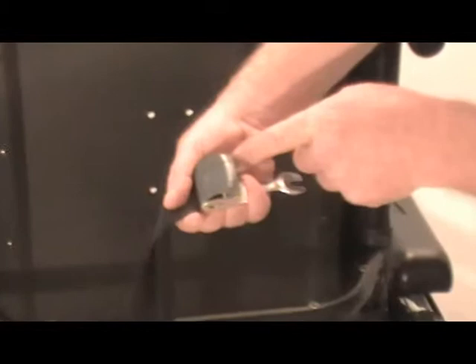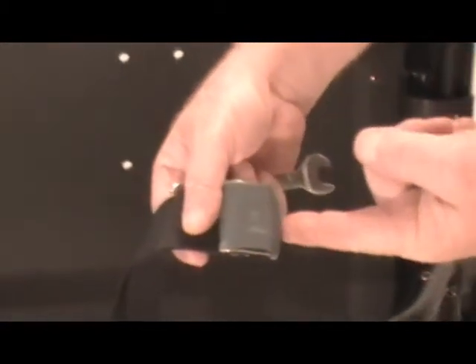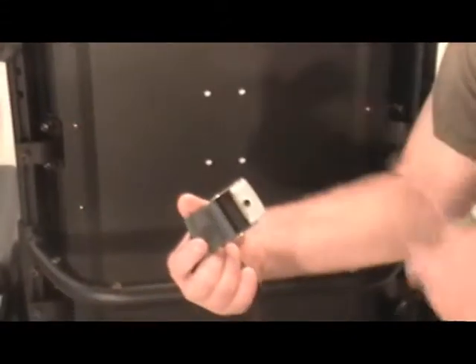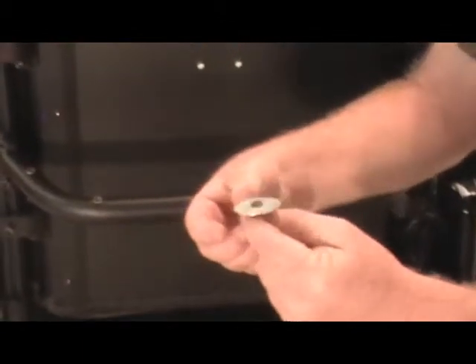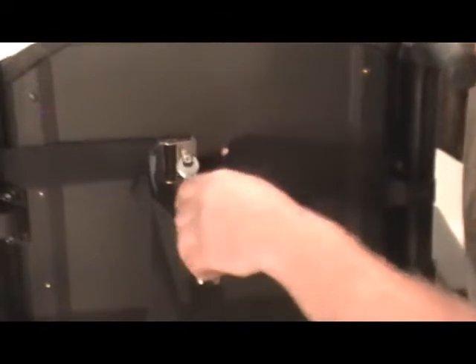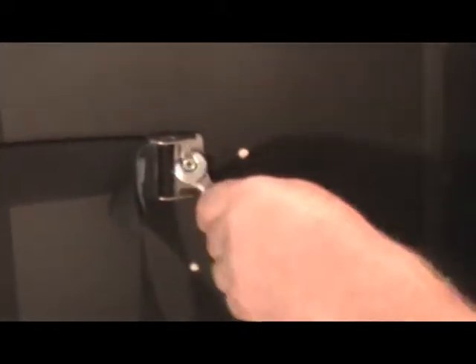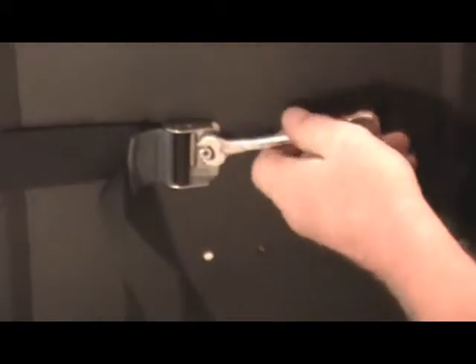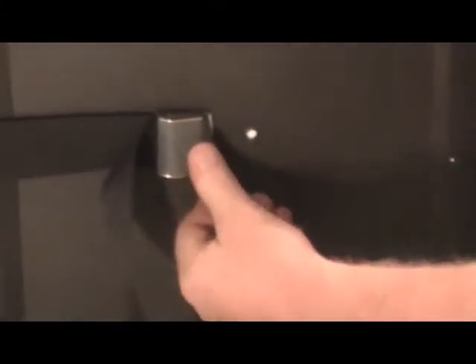The buckle of the Securiti has a little plastic cover over it, so you'll have to flip that up and that'll expose a hole for that. Now we're going to attach the buckle onto the back. We'll give you these fender washers that you'll install on the front side of the chair. Once you have your buckle attached, secure it. Make sure the buckle stays lined up properly straight with the back. Once it is tight, you have the little cover — snap it back in place.